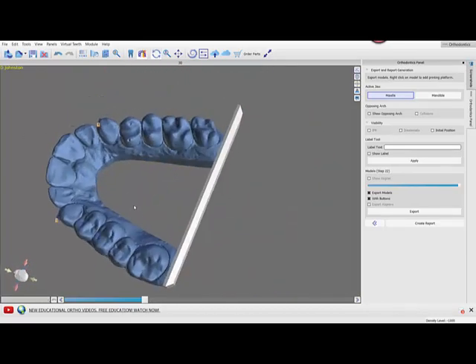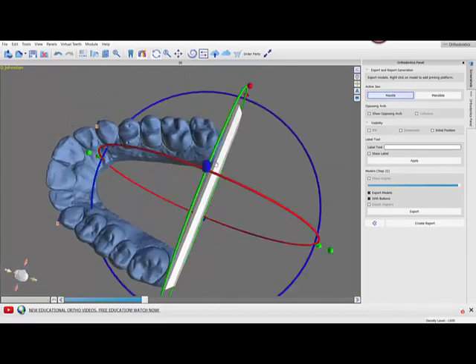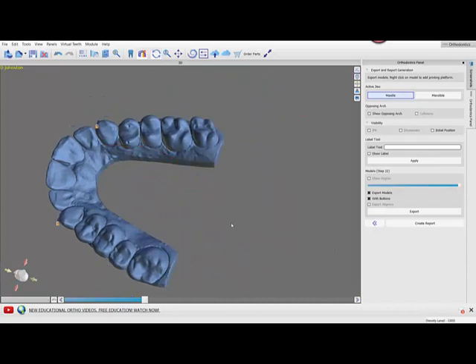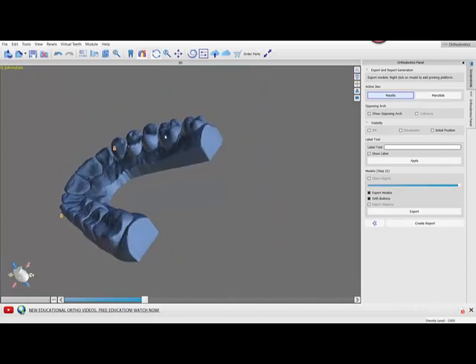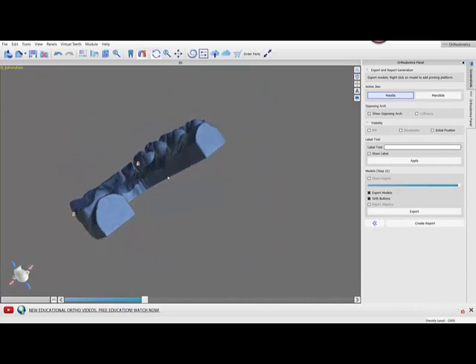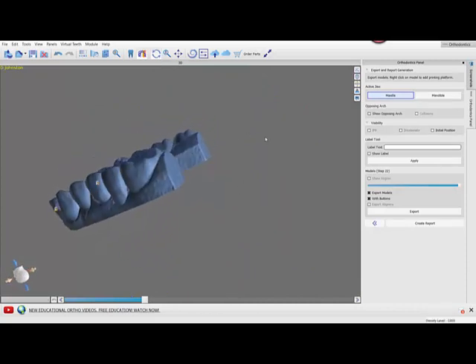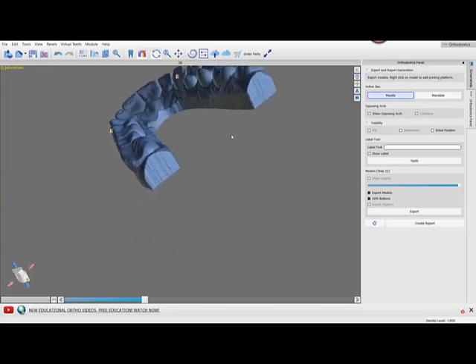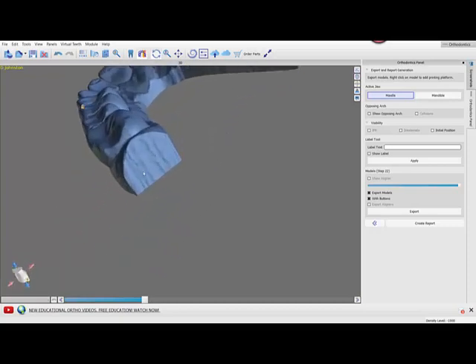Now one of the things that you need to be aware of—let's go ahead and just remove this for a second—the heels that I have created in this case are very flat. I mean they're not perfectly flat, they're rippled, but by and large they're pretty flat.